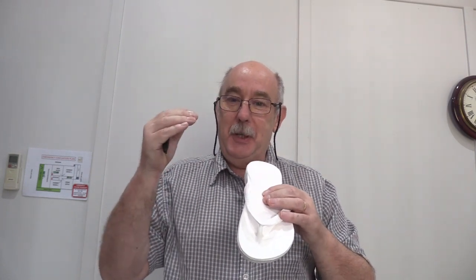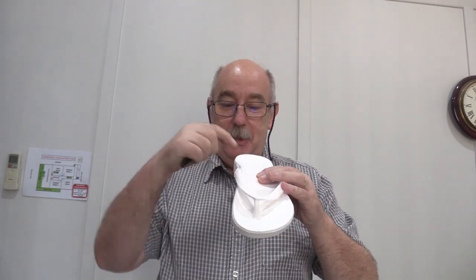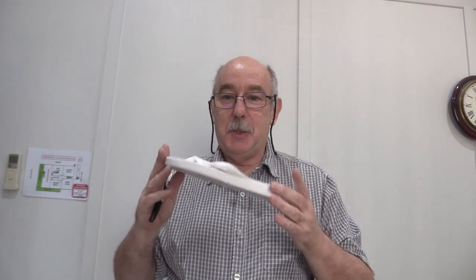The problem is with any arch support — even in these or in an orthotic — if that arch support pushes right where the subtalar joint axis happens to be, they can actually be uncomfortable. Or even worse, if the subtalar joint axis is very medial, the actual arch support area is on the lateral side of that joint axis and is actually a pronatory moment at the subtalar joint. So that's not exactly a desirable thing.